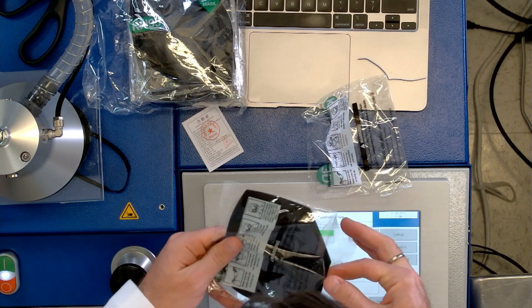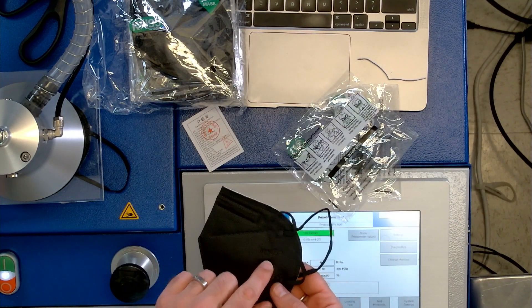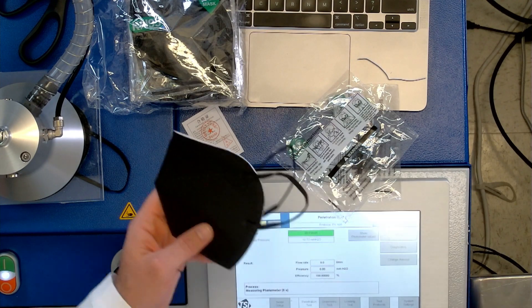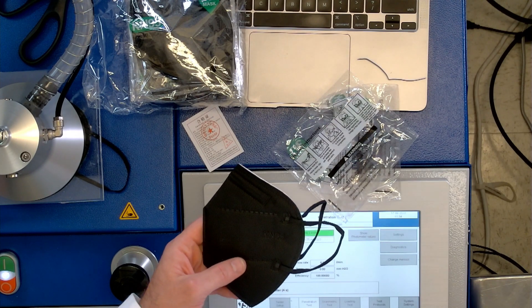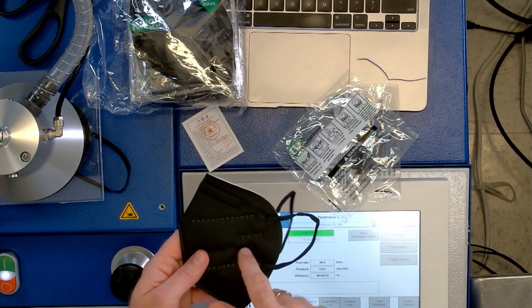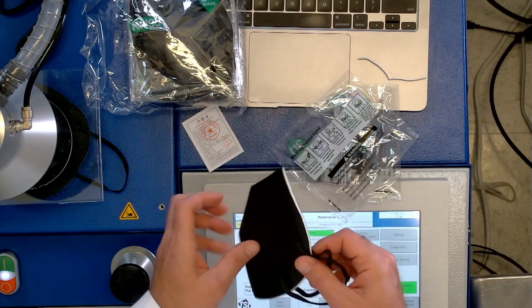Let's see what claims they're making. This is not technically a KN95 — it says KN95 on it, but for the GB 2626-2019 standard, you need to have the manufacturer name and 'GB 2626-2019' printed on it. If they're not going to take the trouble of putting that on their mask, is it really even a good mask? Let's do the quick test.